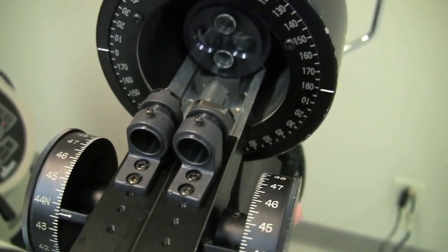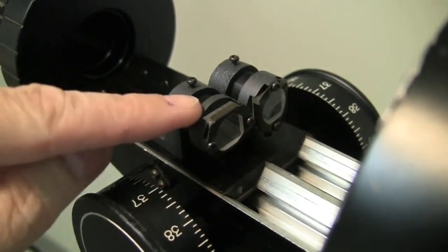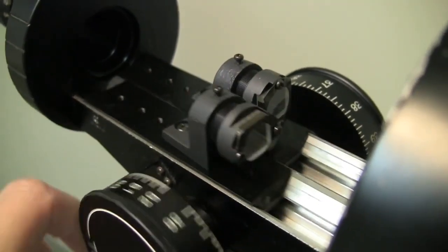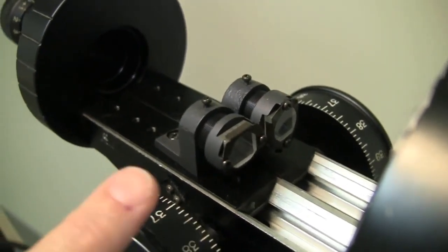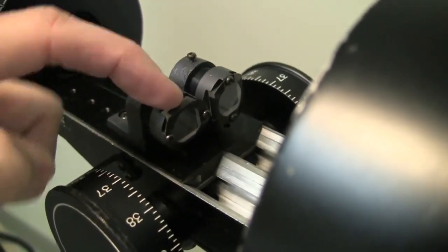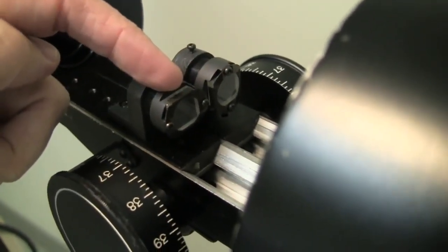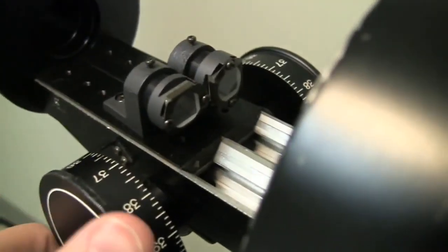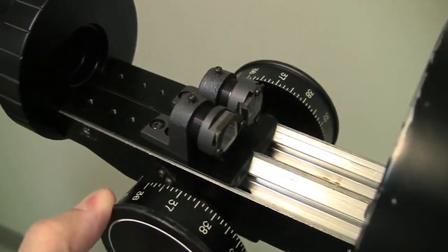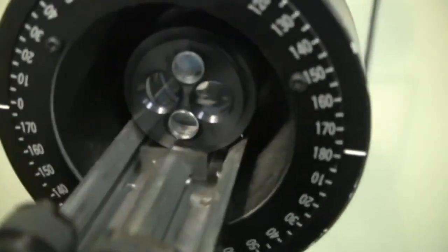So if I move the vertical one, I can see this one is moving instead. And from this side, you can see that I've got these two little lenses and clips on each one of these sliders. Okay, and these are actually two prisms. One of them is a horizontal prism, and one is a vertical prism. The horizontal is for measuring the horizontal meridian, and the vertical is for measuring the vertical meridian. So all you're doing when you turn the knob is moving this prism back and forth, closer and farther away from the patient.